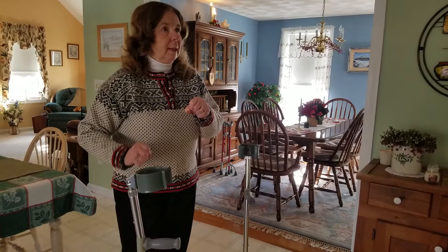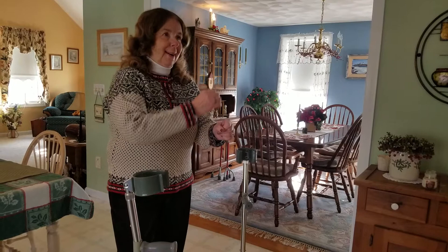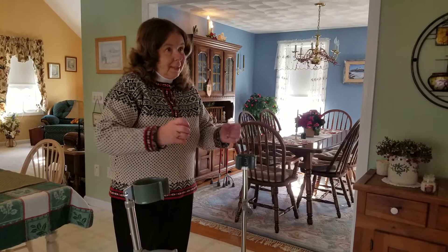So I took a pair of Lofstrand crutches — small ones — and I went to Home Depot and fashioned copper into three legs, using duct tape to hold it onto the crutch. Then I put pipe insulation, the gray stuff, on the copper to give it some depth. Then I went to a patent lawyer and he said, 'This is amazing.' I got my patent within a year and a half.